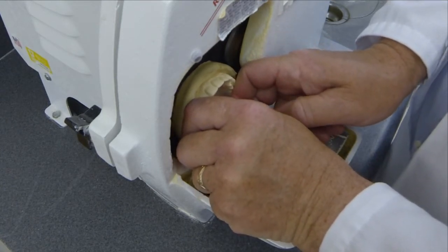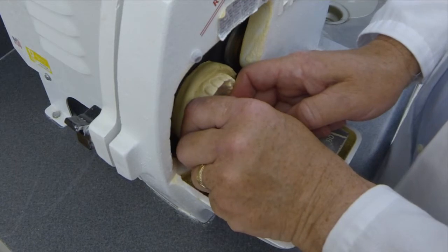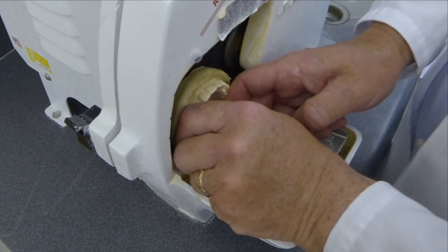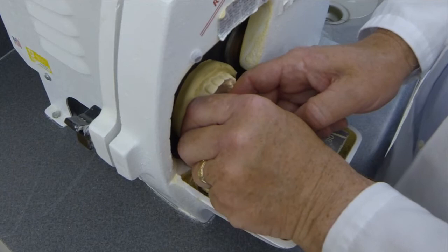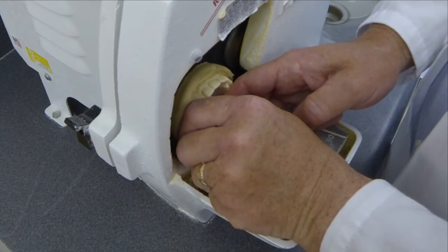And again, in trimming the model, there's water going on the wheel to keep it from clogging with stone. And you also just use a light but firm pressure on the model, and I gently move it from side to side, thinking that it may improve the efficiency of the blade. I don't know if that's true or just placebo.